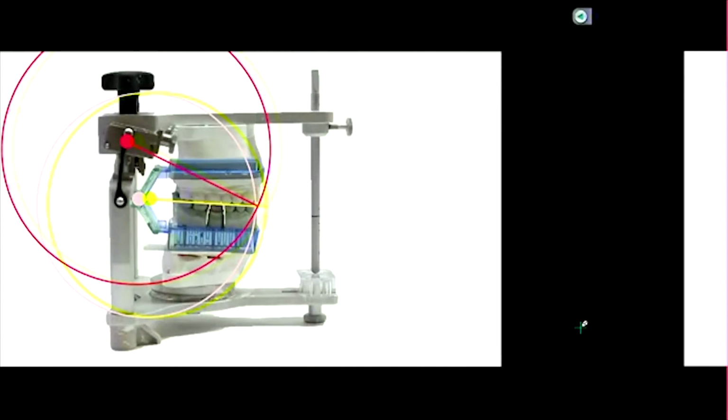Okay, so let me show you the significance of that. I think the significance is more easily seen in lateral movements. This is just, from the side, a sagittal view, of opening and closing. But the same principle applies as you rotate. As I rotate here, or if I rotate here, the principle still applies. If I move my hand, or my arm, this way, it follows a different path, here to here versus here to here, as well as from here to here and here to here. Okay? So I'll show you a couple videos of how.